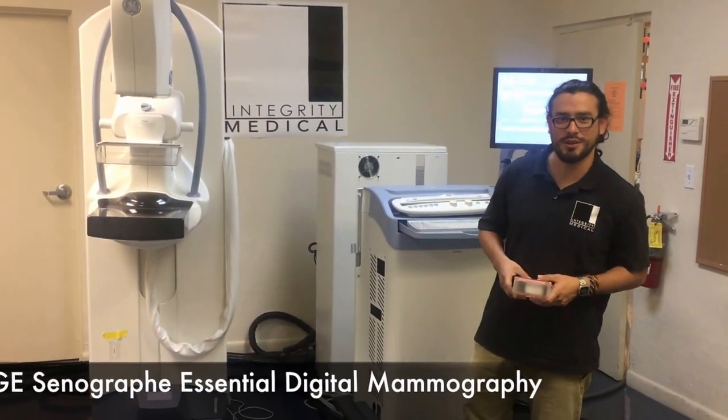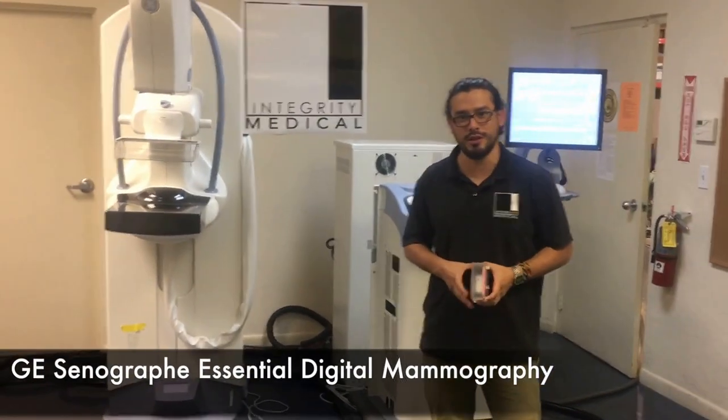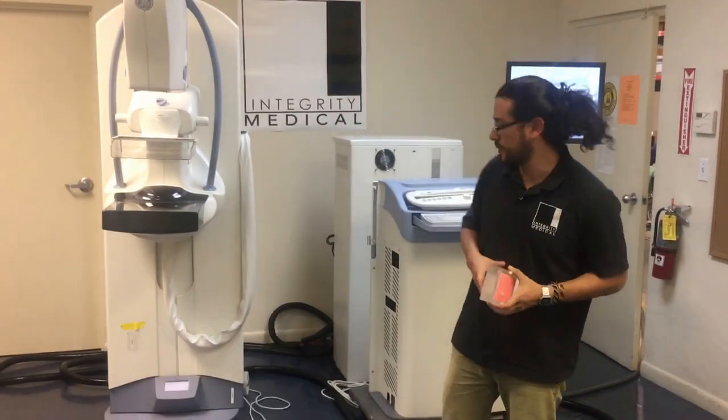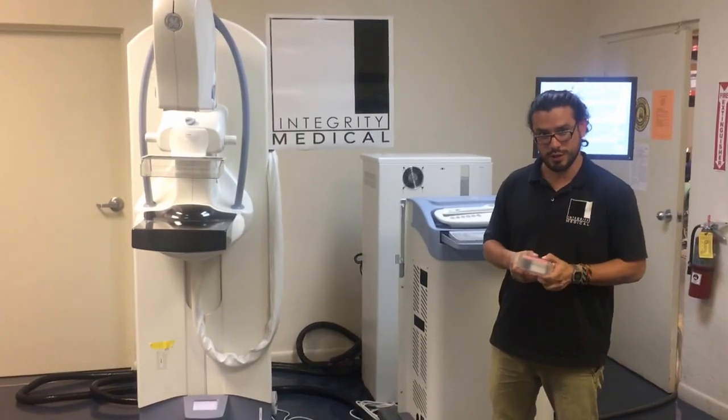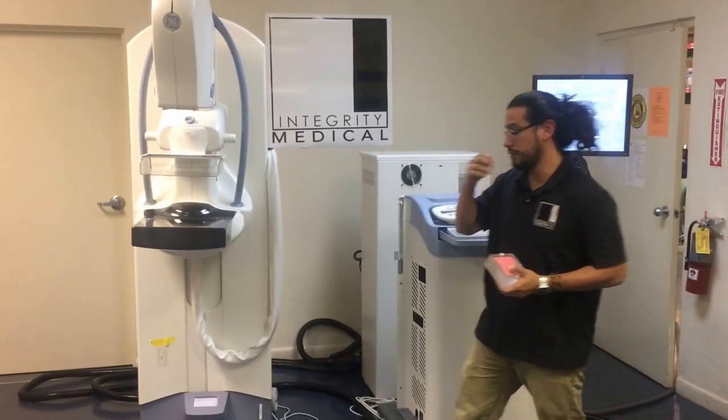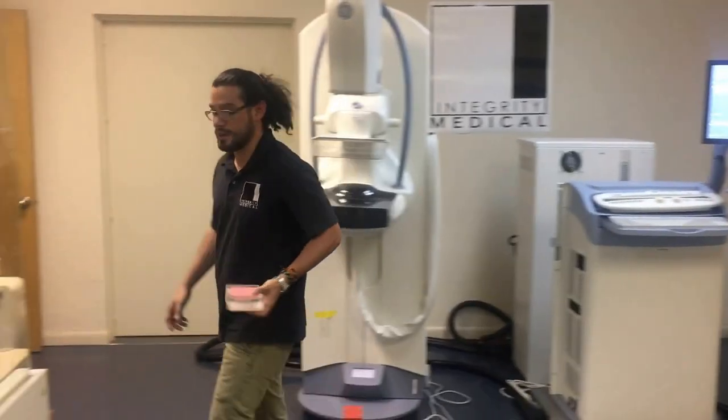Hi. Today at Integrity Medical we're going to see the Essential GE Full View Mammography System. It uses a digital detector. Today we're going to see two tests in order to check your quality. We're going to use the flat field and the ACR Phantom.